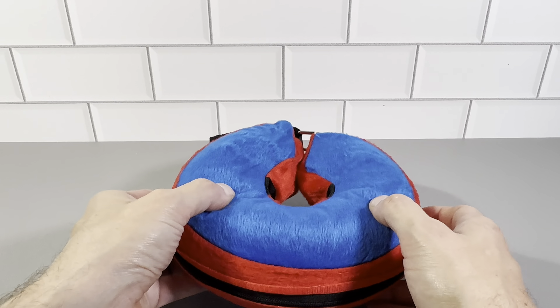Definitely want to check this out. It's the Inflatable Dog Collar by Billy Barra. Highly recommend this one.